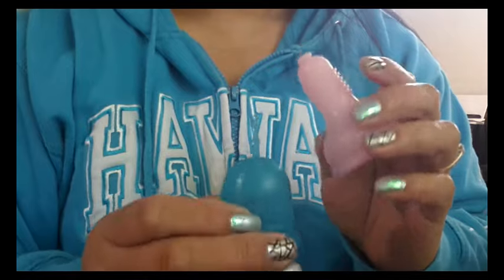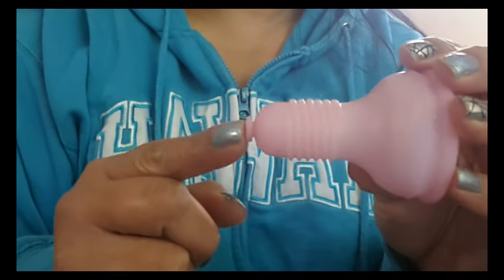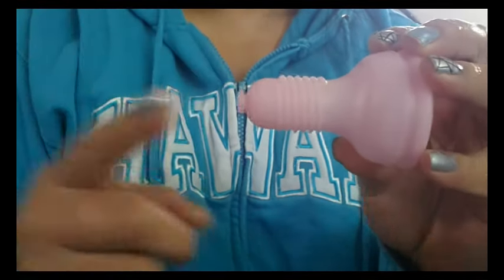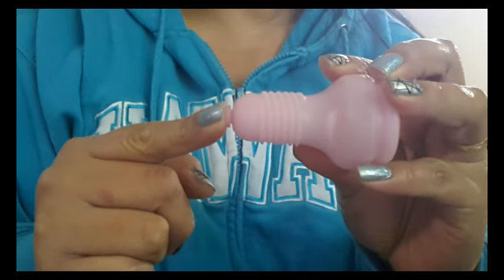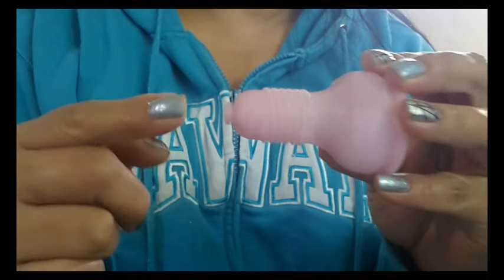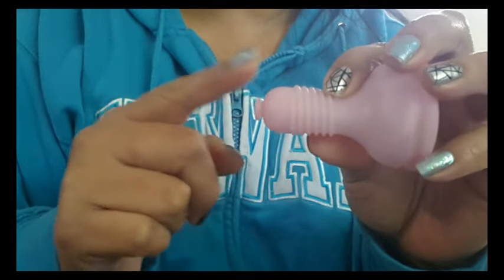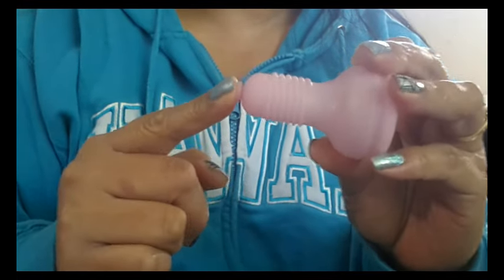This cup doesn't have a stem like other cups do, like the Amy Cup Crystal. It has this flat tab, which is quite firm. Having this tab actually helps give you a solid flat surface to push on when using the applicator to travel through there — you have something to press down on and the back of the cup doesn't cave in. It's not really a stem and you can't really cut it off, because there is no seal between this tab and the cup, and you need that firmness for it to be pushed through the applicator.